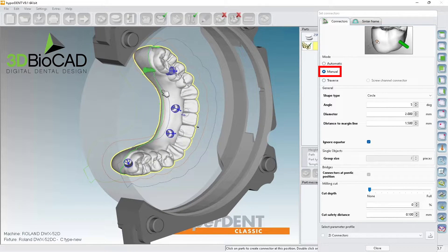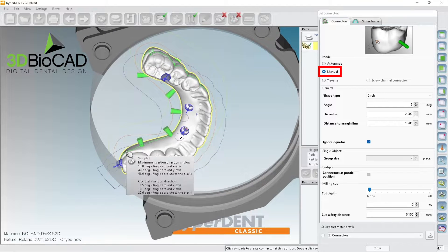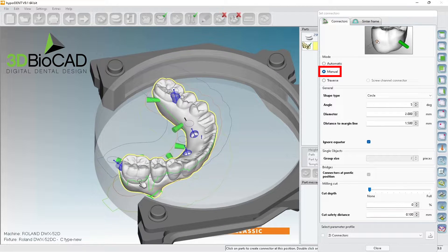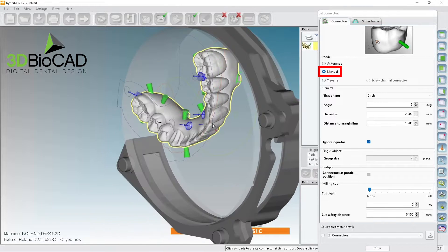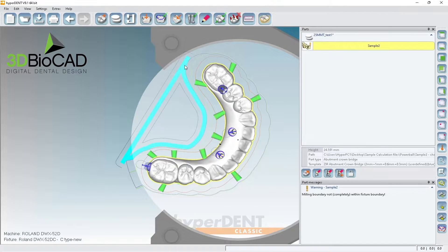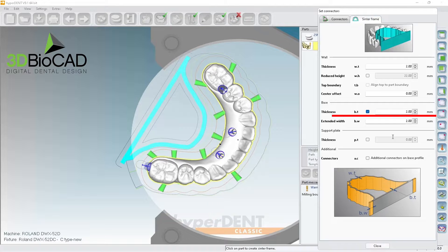Let's see what we can do. I would first put connectors here, here, here, here, here, and here. Then I'll put the stabilizer and see what happens. The stabilizer is going more to the right, so I'll go to stabilizer settings and make the BW zero — it just makes it a little less.